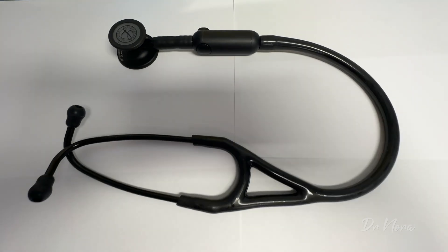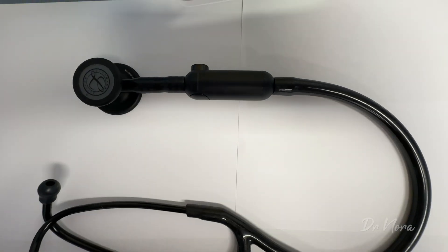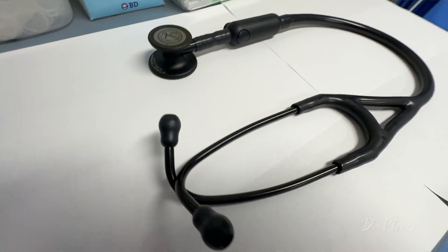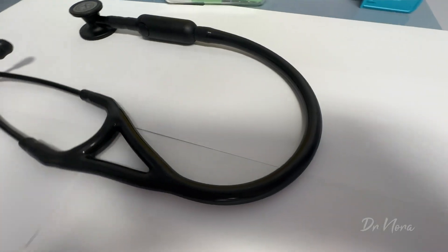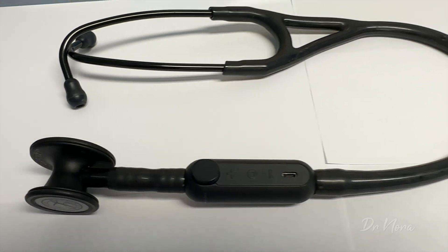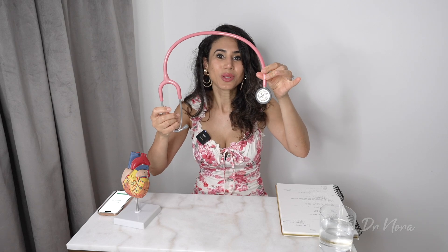I've had my hands on this for about a week or two at work, so let's talk about the aesthetics first of all. As you can see, it's a pretty sleek looking stethoscope — it's pure black, and you can get variations. You can change the chest piece, which can be gold, silver, or chrome, but the predominant tubing will always be black. As it has its main electronic piece towards the end of the stethoscope, it does make it a little bit heavier than your traditional stethoscope, which has none of those appendages.